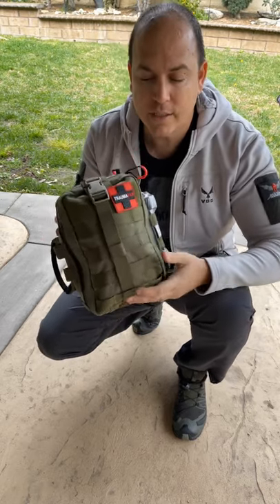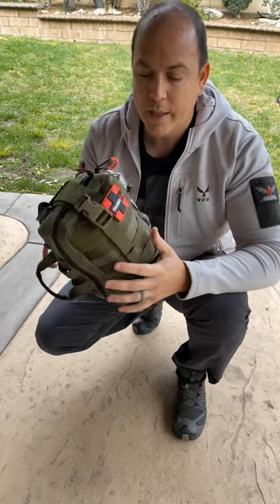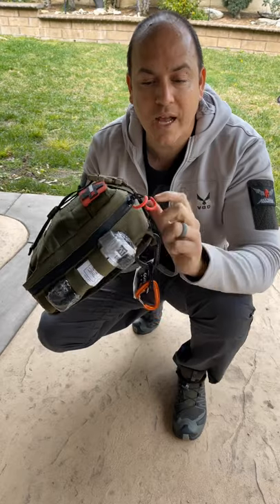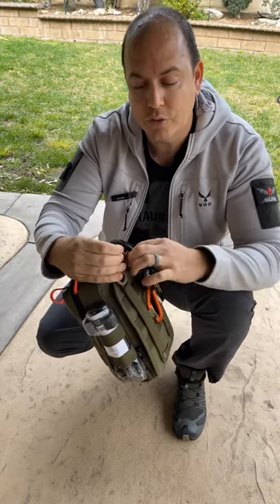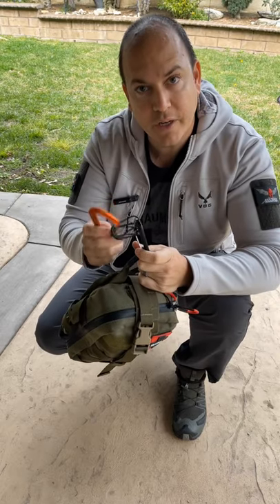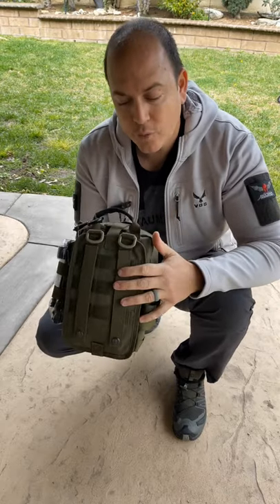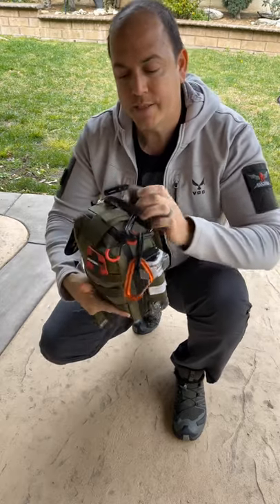The bag itself is built on the platform from our Asher Trauma Pack Elite — 1,000 denier Cordura, really robust material. The zippers are reinforced and waterproof. It comes with two standard zipper pull options: high-visibility red and black subdued ones. We've also upgraded to rated carabiners — these are the Metolius carabiners, available in orange or black, rated at 24 kilonewtons, almost a 5,000 pound working load. The back of the bag has a MOLLE platform so you can attach it to something, and the bag itself will rip away.